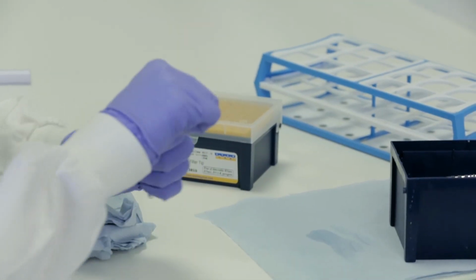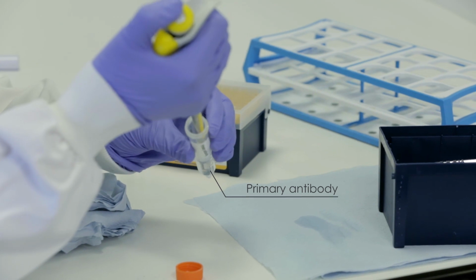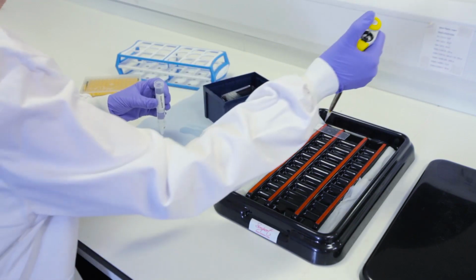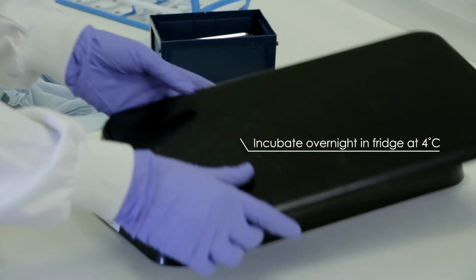Diluted primary antibodies are pipetted onto the tissue sections and the slides are put into a tray lined with damp tissue to keep them moist, before being incubated overnight in the fridge.